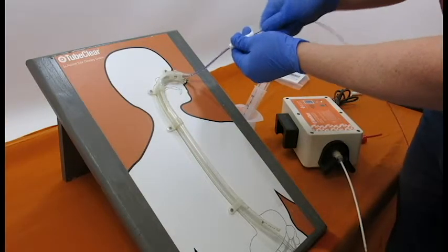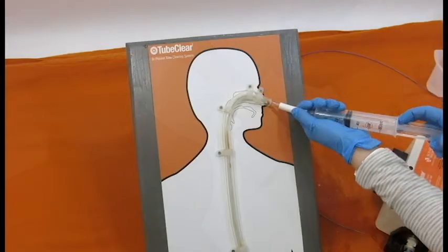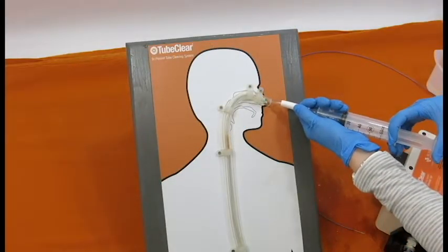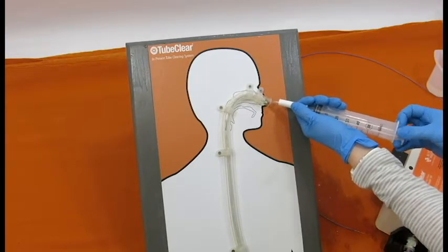Each clog type requires a slightly different technique that can help clear them more efficiently. With practice and a proactive approach, these clogs can be cleared quickly, restoring patency to the tube so that nutrition and medication requirements can resume.